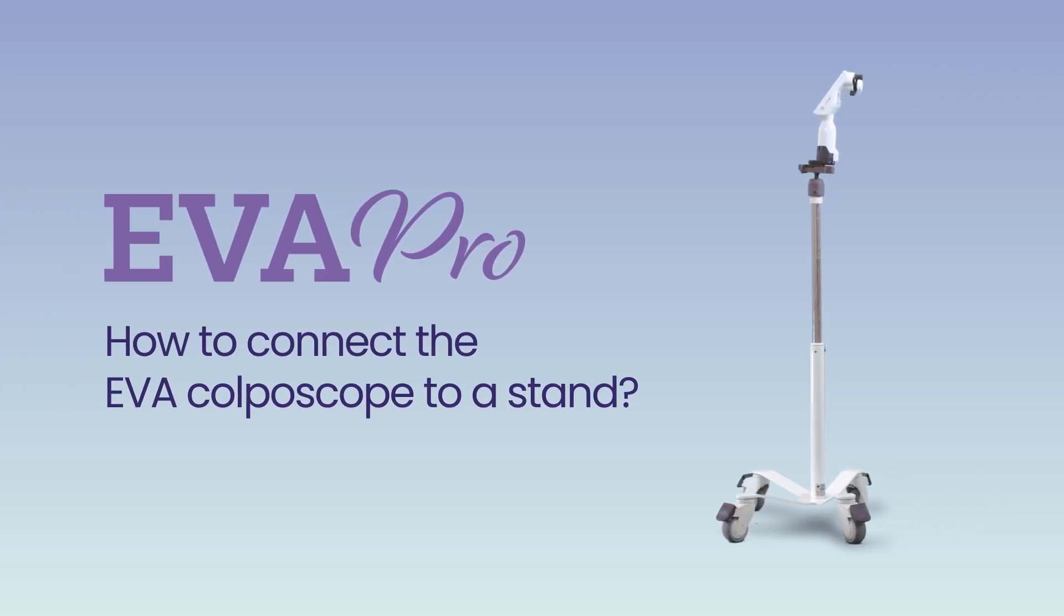Together with your EVA system, MobileODT provides a stand for stabilizing the colposcope while capturing an image. In this video, we will explain how to connect the EVA-PRO device to a stand.